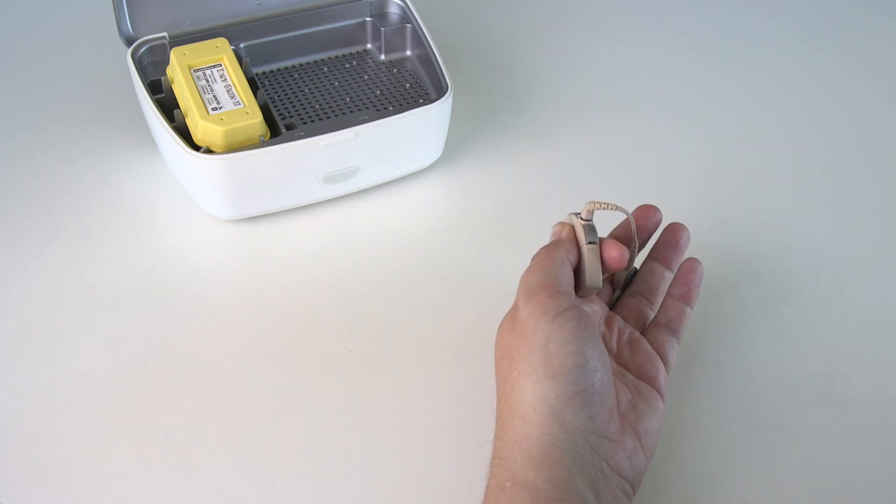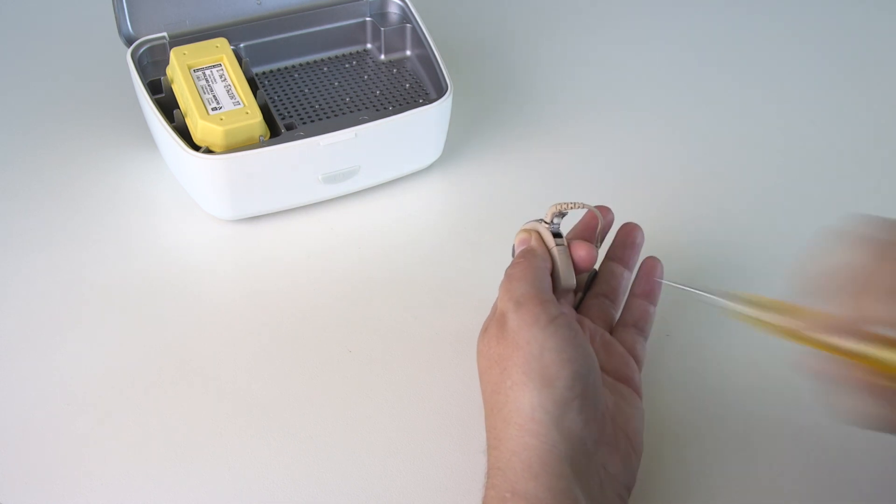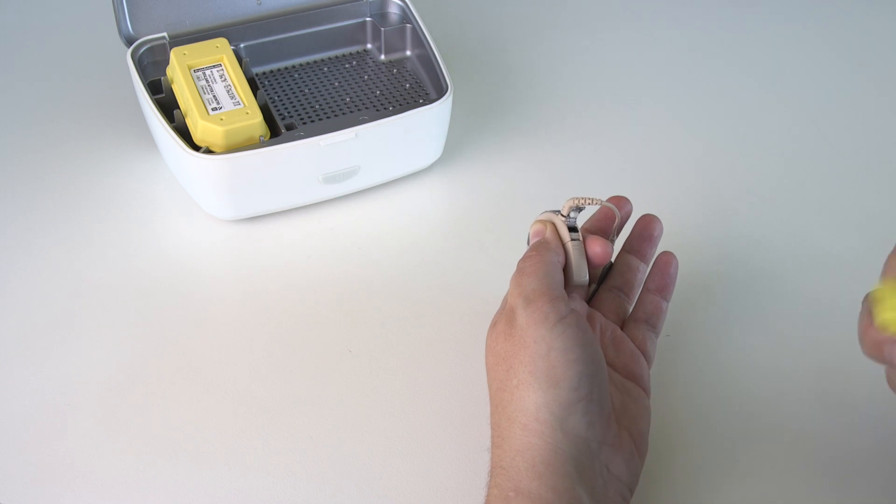Also check the accessory socket is clean. Remove dirt or dust by blowing or with a soft dry cloth.